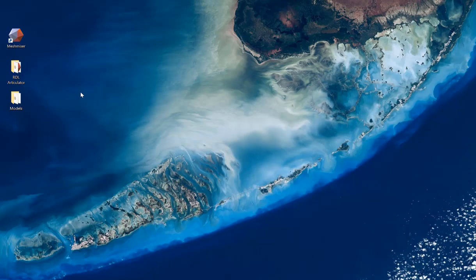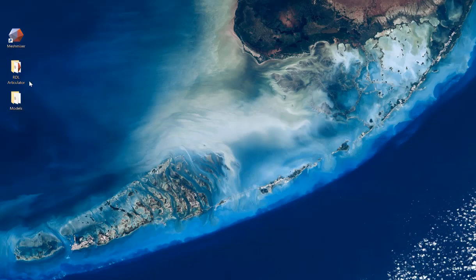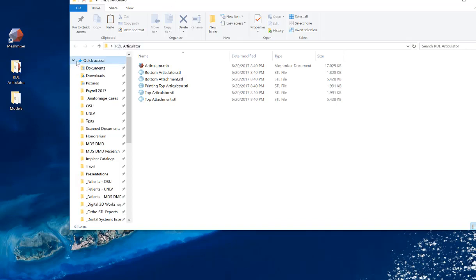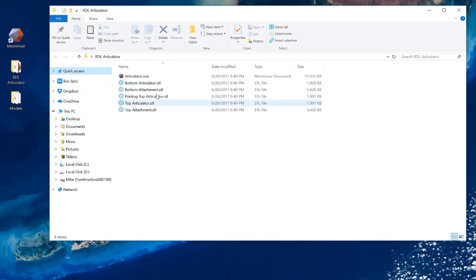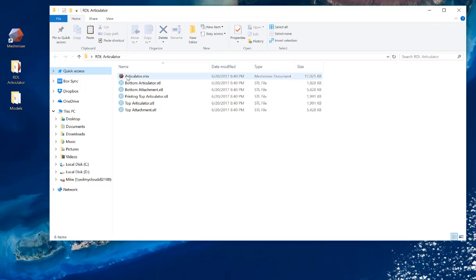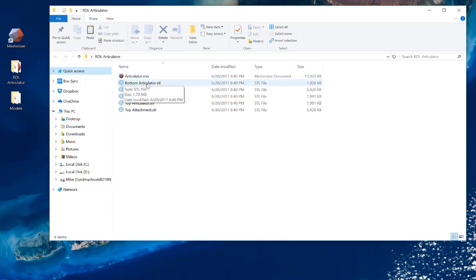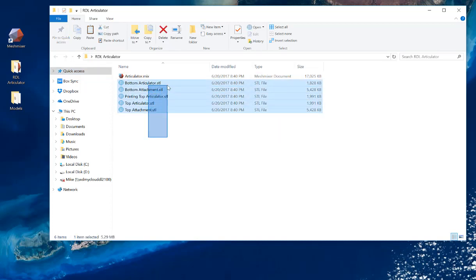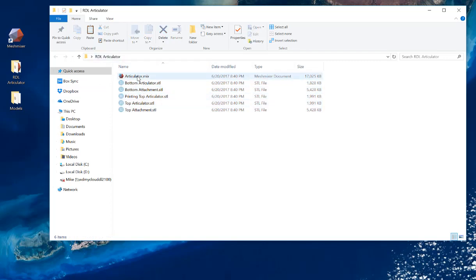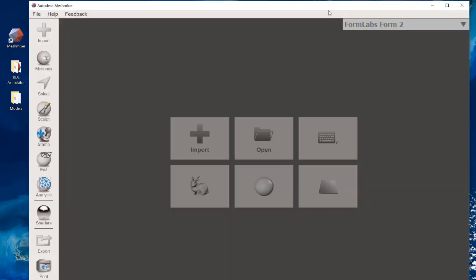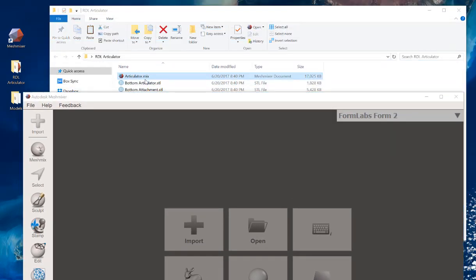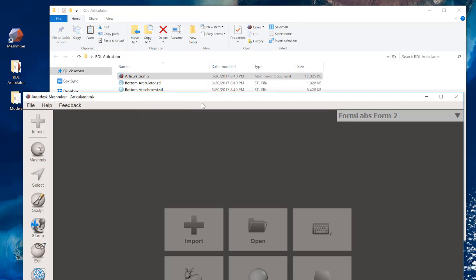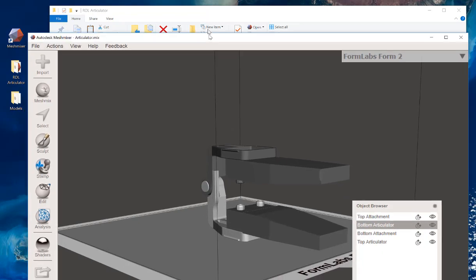Now what we're going to do is simulate a patient scan and putting it into a virtual articulator. The coolest part about this idea is we went ahead, working together, and designed this folder using his articulator and some attachment parts that I helped develop for him. And the idea here was that you can open up MeshMixer in this .mix folder. So you can see here we've got articulator attachments functions. Unless you're kind of an advanced user, go ahead and ignore these STL files. What I want you to do is open up MeshMixer, and you're going to drag articulator.mix into your MeshMixer software.